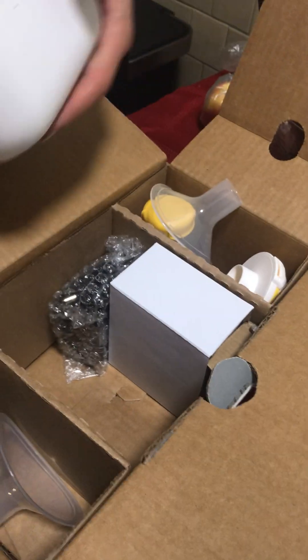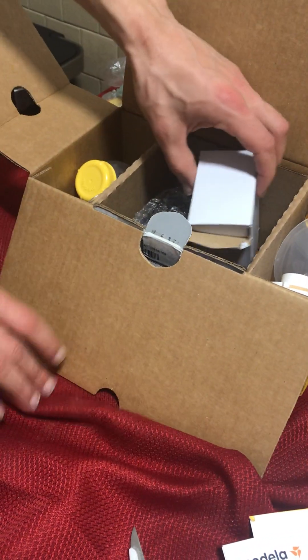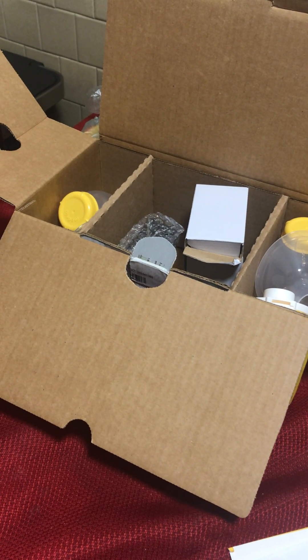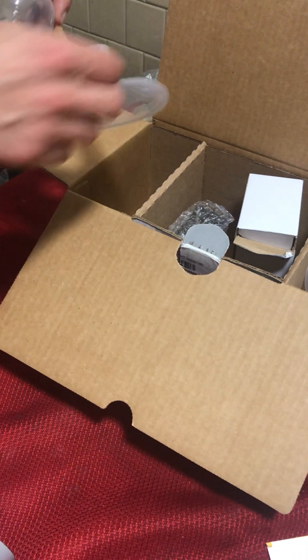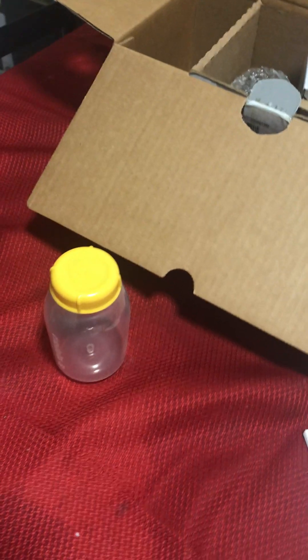Let's see what's inside, try to take the instructions out. These are both the same — two bottles, I love it. It's so cute. This is the same on both sides. Oh! It's like this, baby. See that?